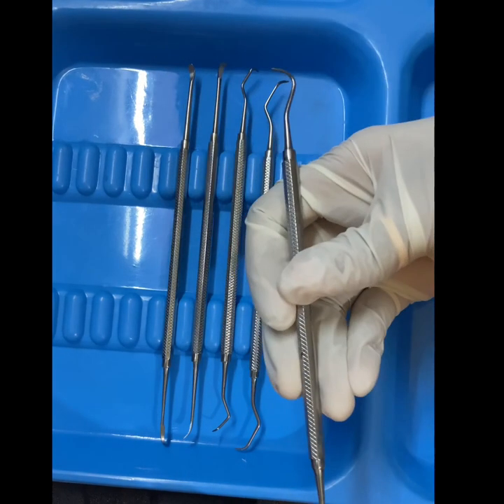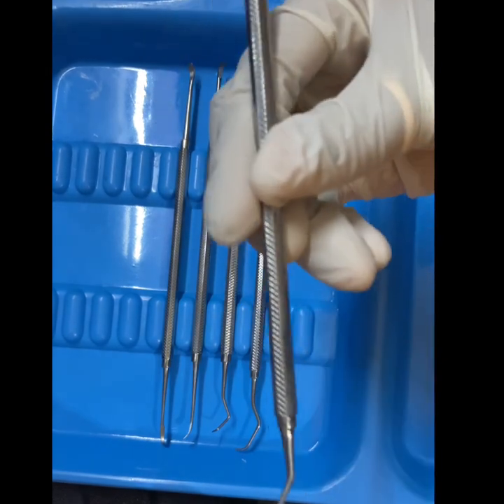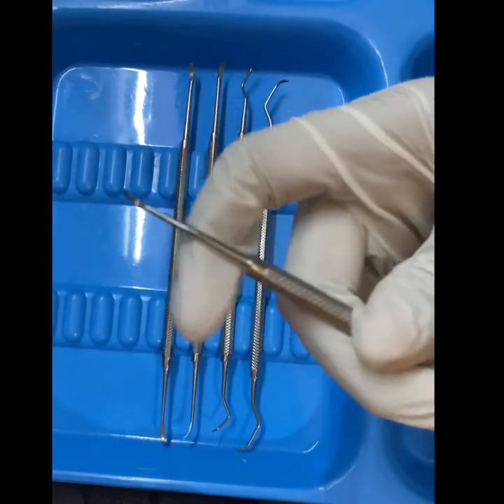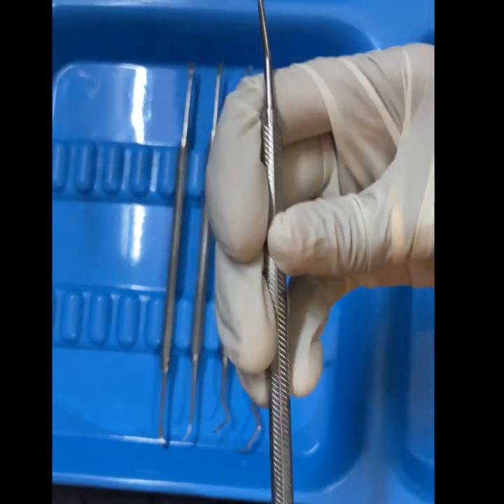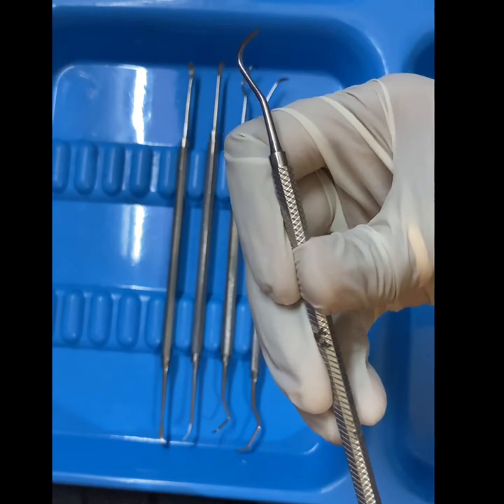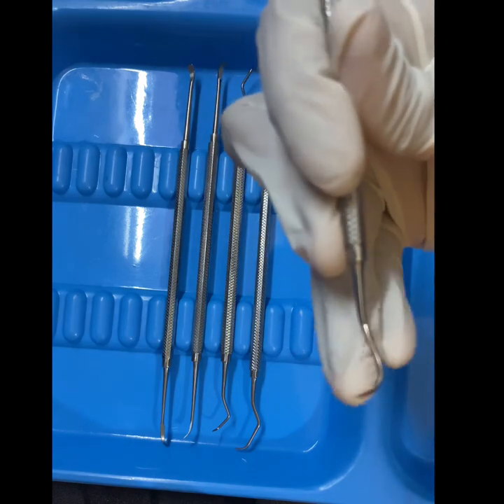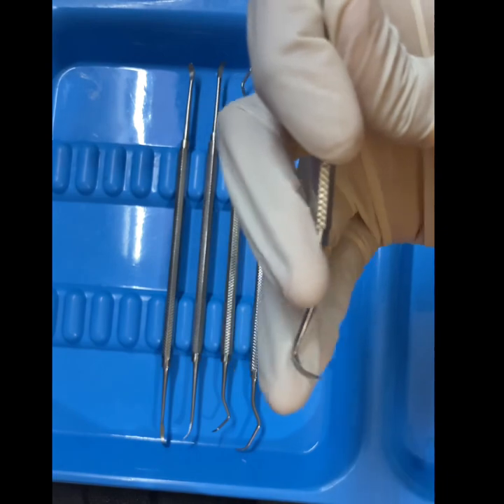The first one is the sickle scaler. This is the sickle scaler — its blade design is at 90 degrees. It is used for supragingival scaling. It cannot be used subgingivally due to its blade design, as it would lacerate the gingival tissue.